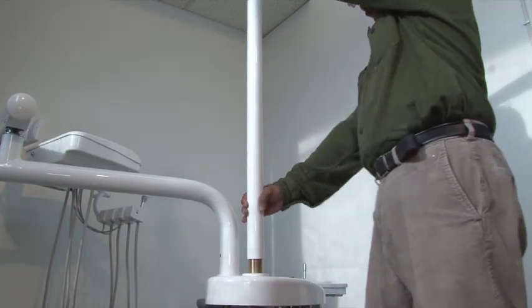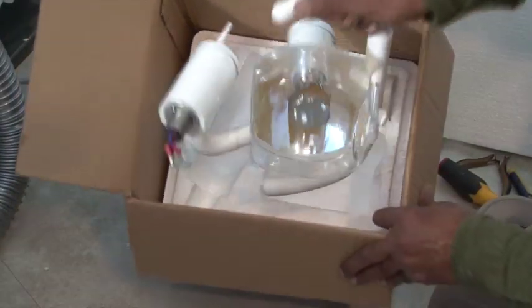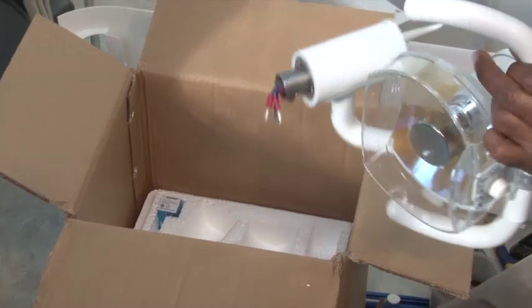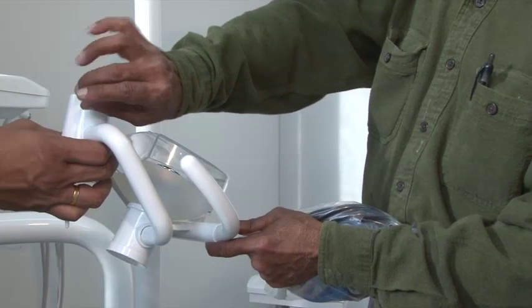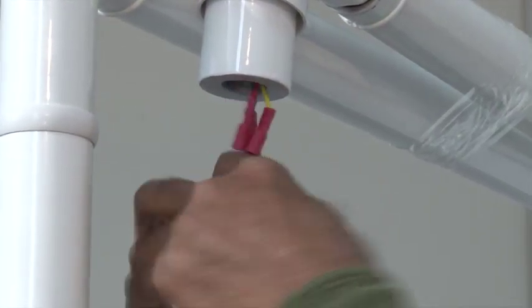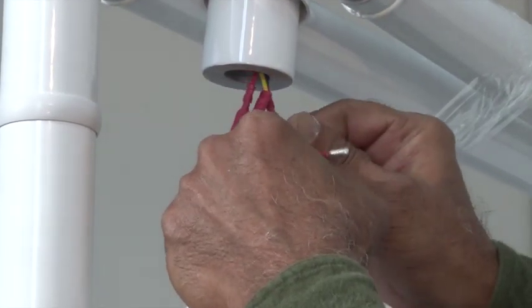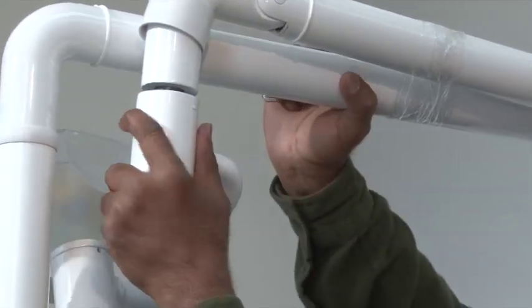Make sure that the pole fits on the notch correctly. Remove the light head from the box — you will find the plastic collar and an extra light bulb in the box. Remove the screw using the provided Allen key. Insert the plastic collar and connect the light head by connecting the corresponding wires, then tighten the screws.